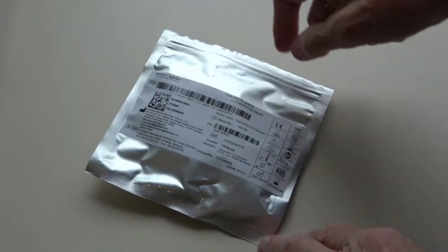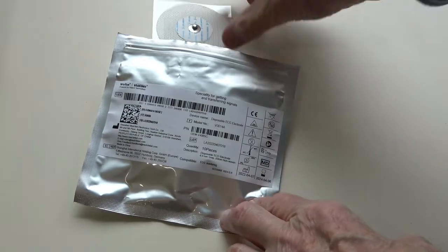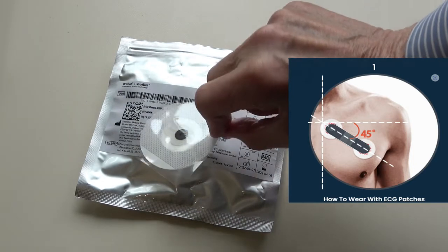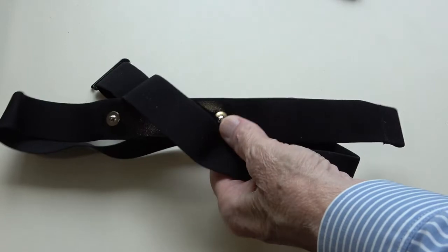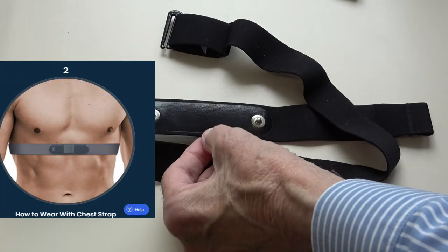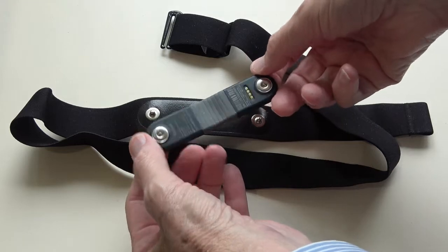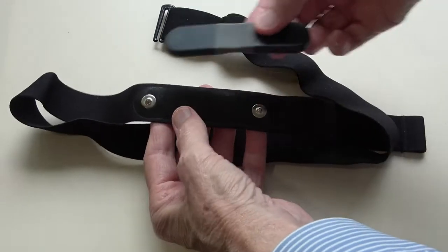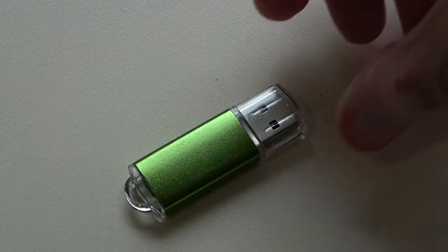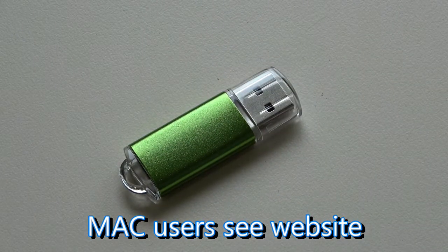Let's start by having a look at what you get in the box. This contains little stickers that you can stick to your chest — I'm sure you've seen these in hospital. This is the chest strap, and not surprisingly you put it on your chest. Here is the heart of the matter — no pun intended — and once you've got this on you simply clip it like that.